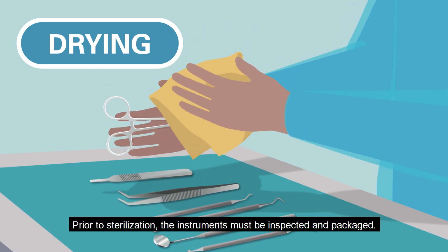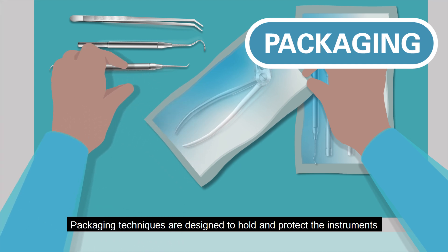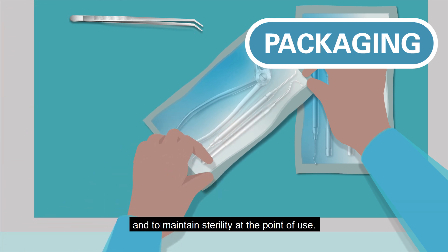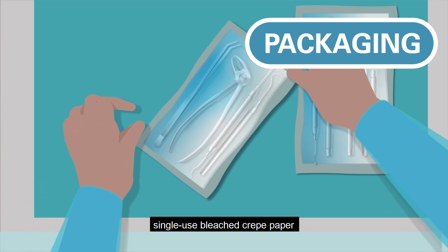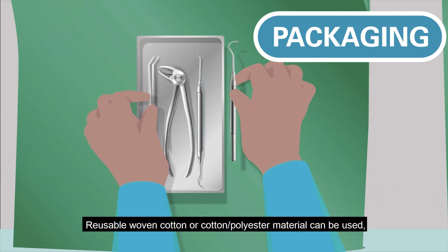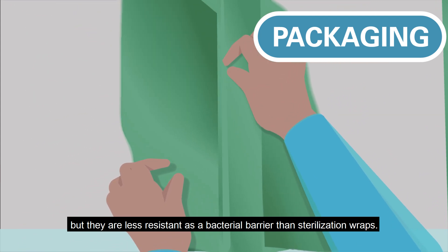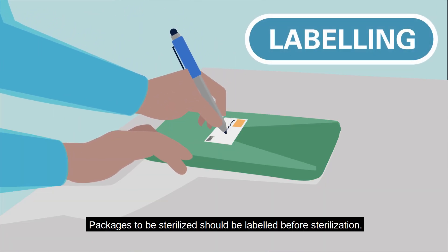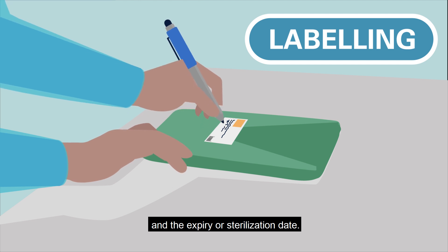Prior to sterilization, the instruments must be inspected and packaged. Packaging techniques are designed to hold and protect the instruments in order to facilitate sterilization and to maintain sterility at the point of use. Commonly used sterilization wraps include single-use bleached crepe paper and wraps combining cellulose and synthetic fibers. Reusable woven cotton or cotton polyester material can be used, but they are less resistant as a bacterial barrier than sterilization wraps. Packages to be sterilized should be labeled before sterilization, and the label should include the name of the instruments and the expiry or sterilization date.